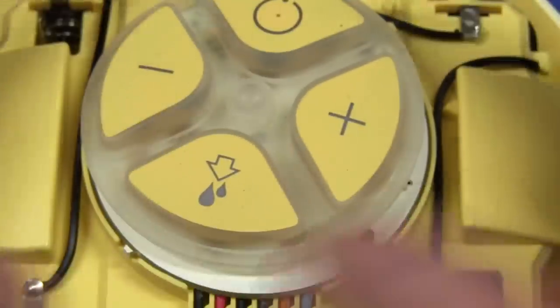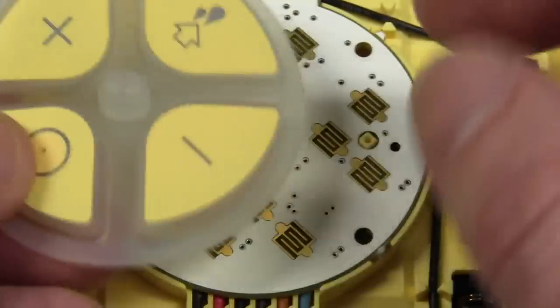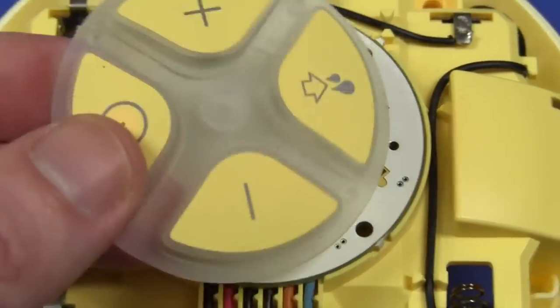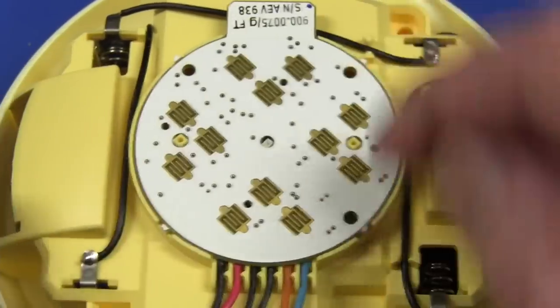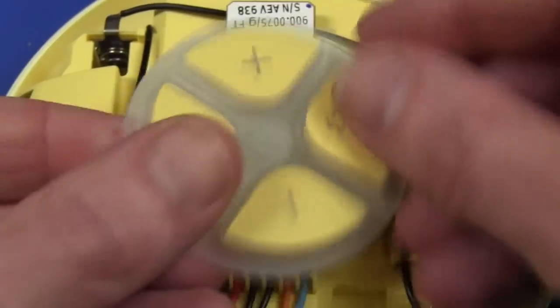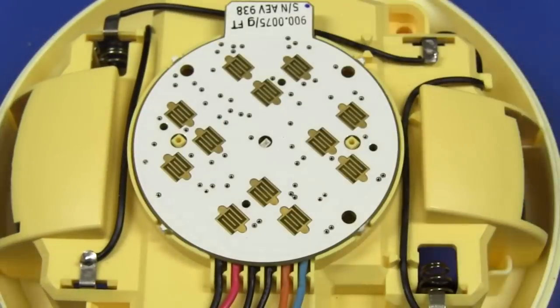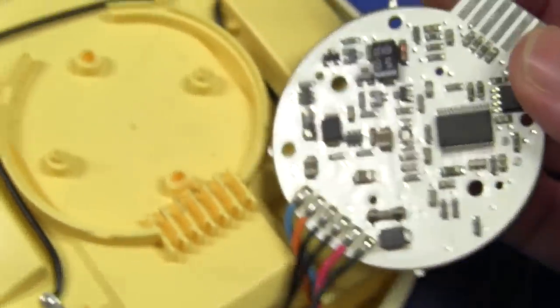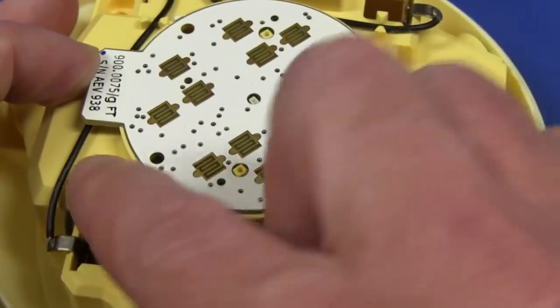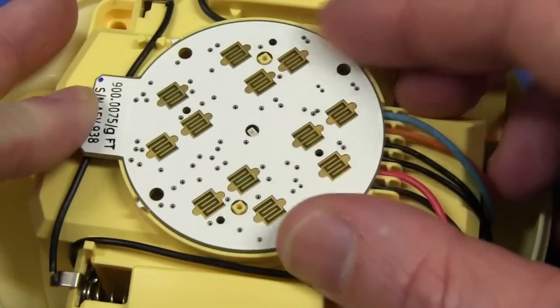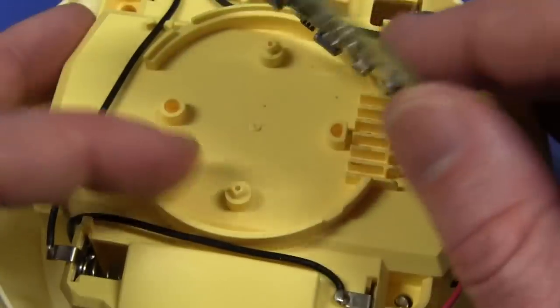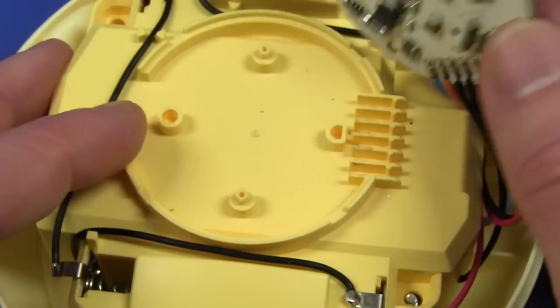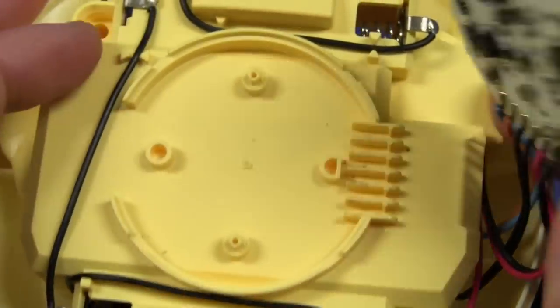They put a lot of effort. There's another one down in there, little pinch in there and there to keep the cable in place. Beautiful. Oh. And also clearly what they've got is there's the LED in the center of the board there. You can see that. That's a reverse mount LED exactly like I have on my microcurrent. If you've seen my microcurrent, no doubt, there we go. It's got a reverse mount LED on it poking through the, well, what this, you can call it the front side of the board, I guess, with all the components mounted on the back. And that just shines through and uses the rubber here as a little light pipe kind of thing. So it just shines out there.